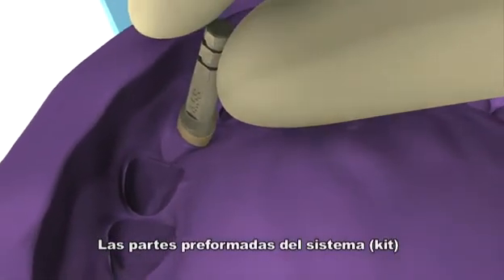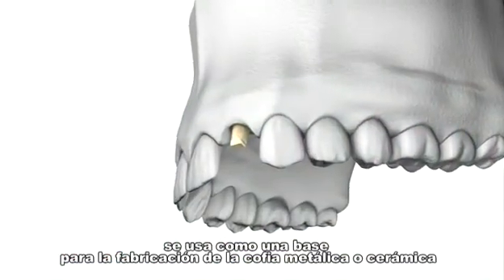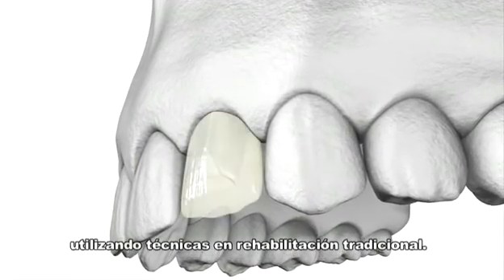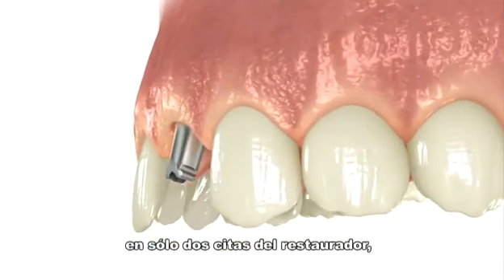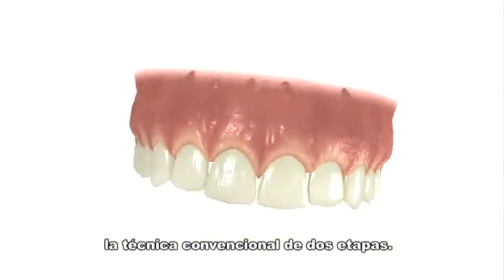Preformed prosthetic parts save the laboratory time and money. The contour waxing coping is used as a base for the final crown and cast, using traditional prosthodontic techniques. The patient receives the final crown in only two restorative visits, saving two to three appointments versus a conventional two-stage technique.